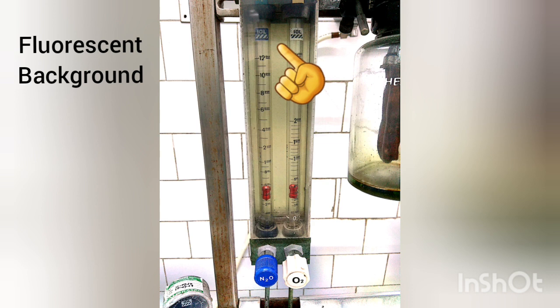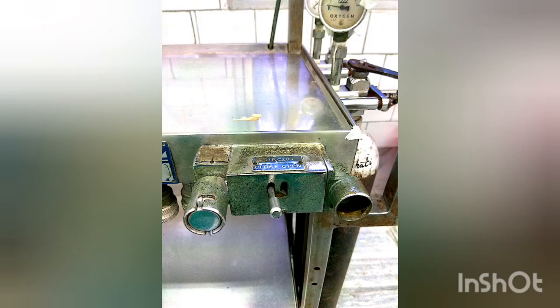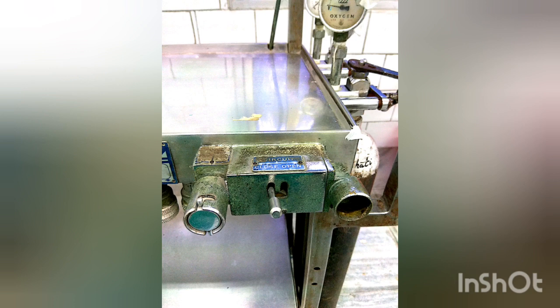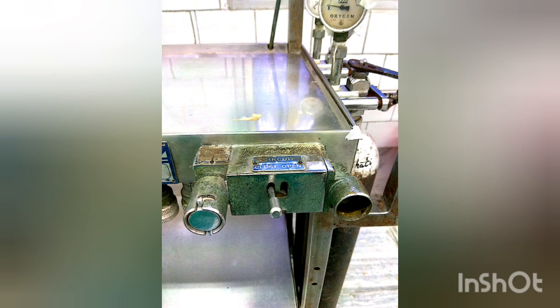Another feature of the Boyle's machine is the oxygen flush. This is an emergency oxygen supply channel which bypasses the flow meters and the vaporizers to deliver oxygen at 35 to 75 liters per minute at a pressure of 45 to 55 psi. It does not bypass the first pressure-reducing valves — otherwise, the lungs may explode.